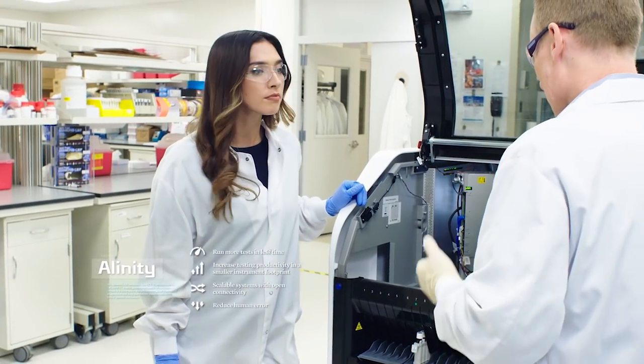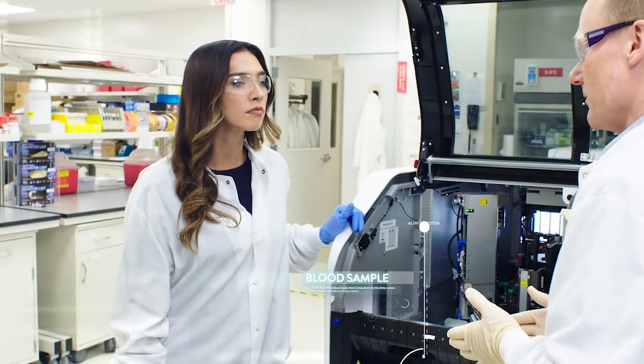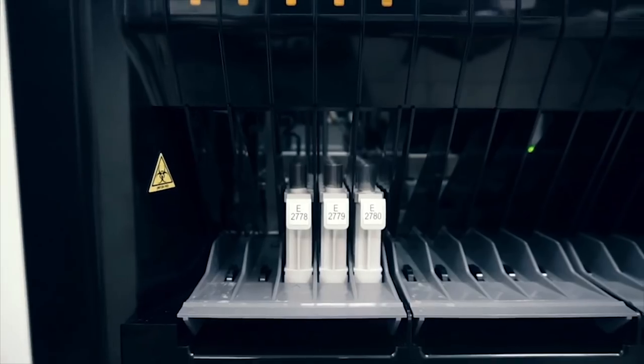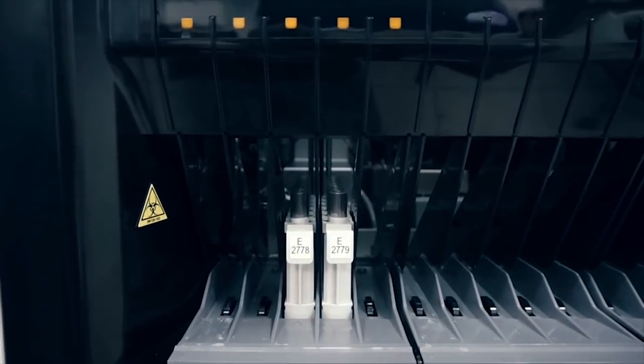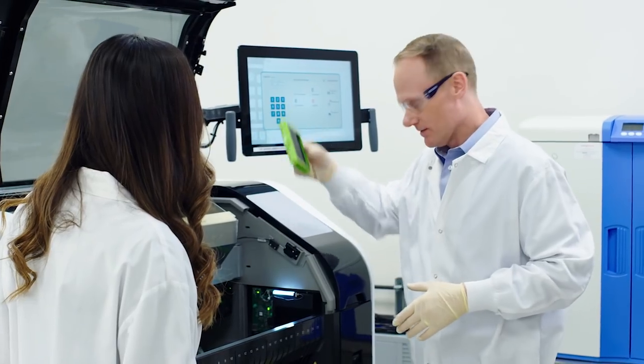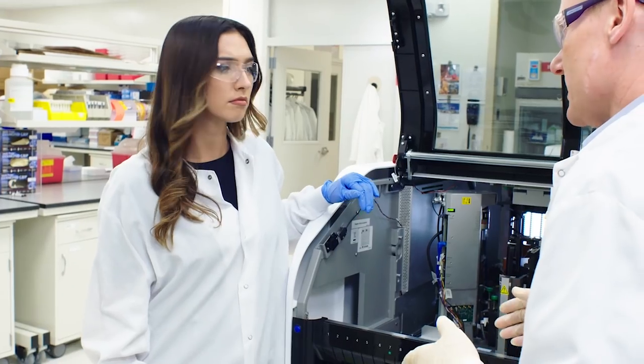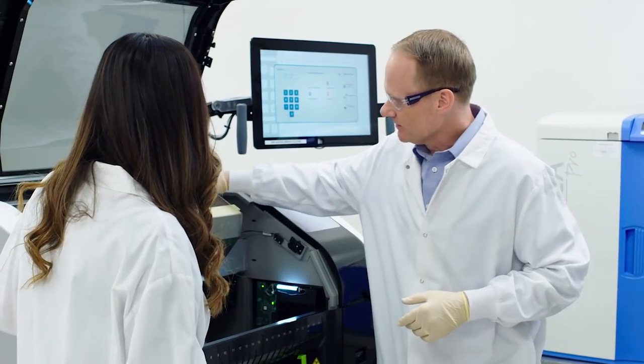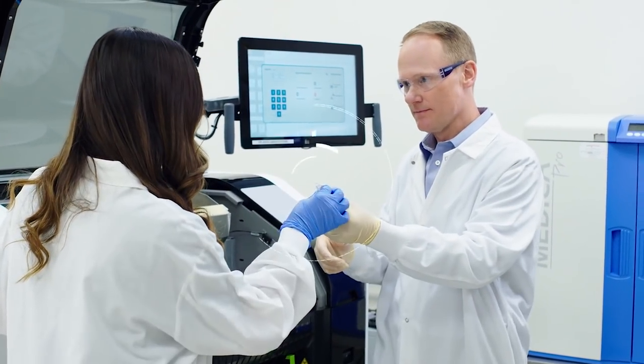So now that it's on the system, very small precise quantities of the patient's blood are drawn up. The system will combine that patient sample with a unique bioreagent. That mixture is deposited into a reaction vessel. It's really just a little test tube. Very cool.